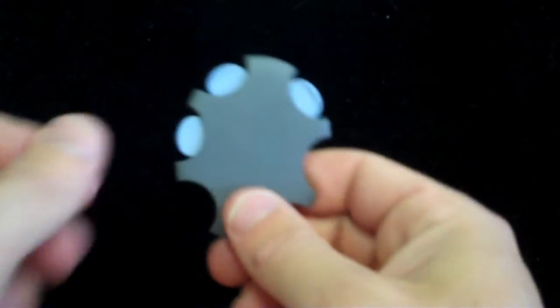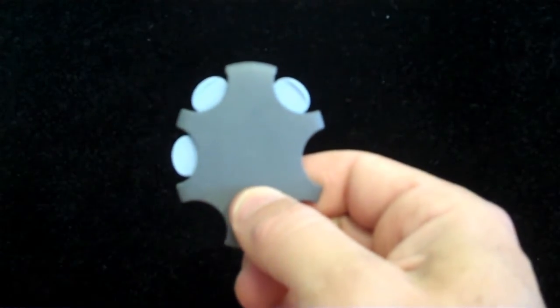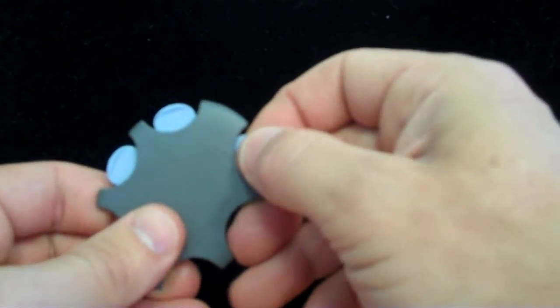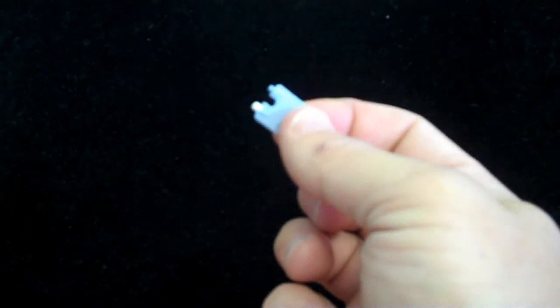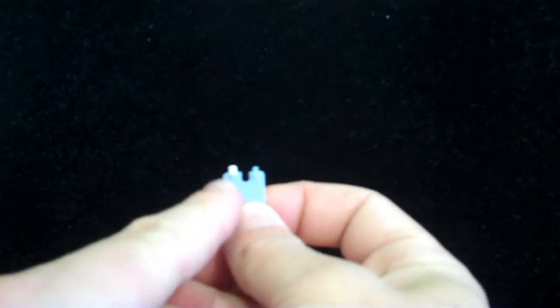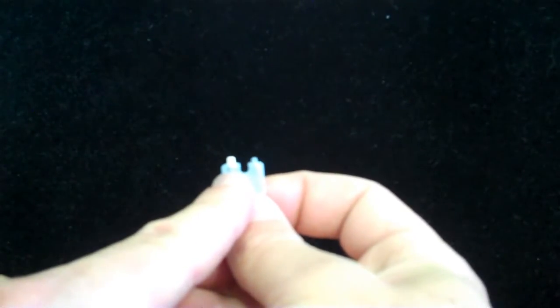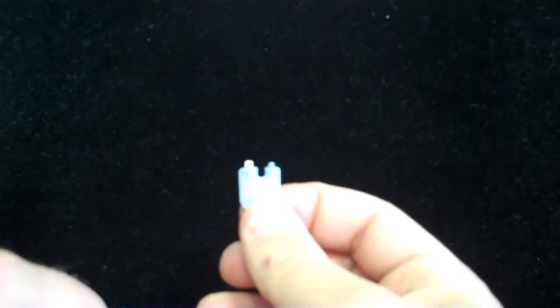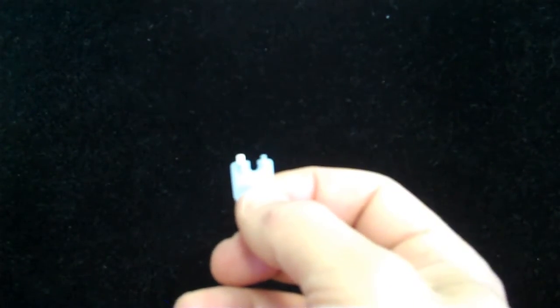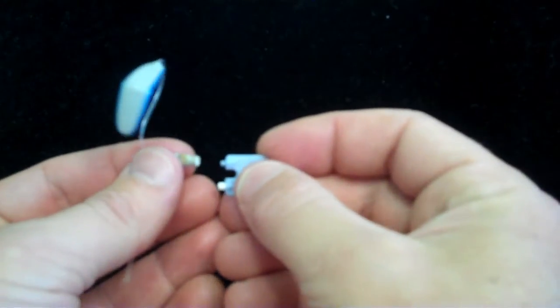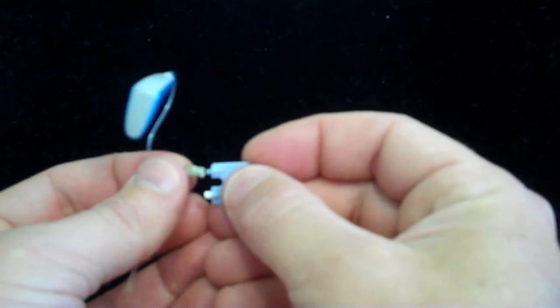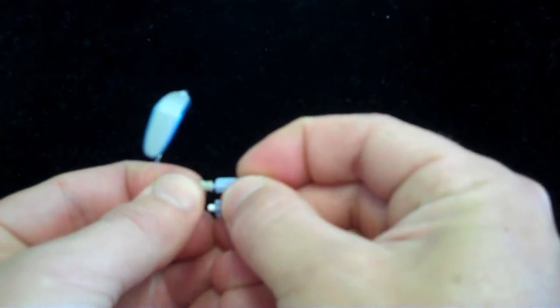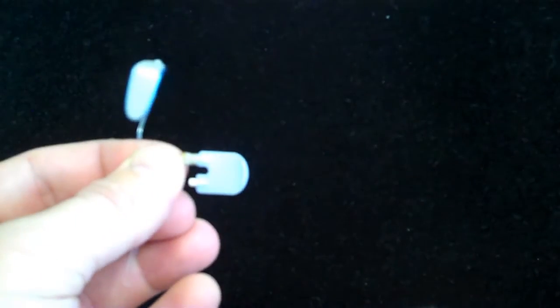The new filters in this case come in a case just like this. We remove one of the tools just like the Phonak product. One side of the tool has a new filter. The other side has a hook to remove the old filter. We'll take the side with no filter on it, just the hook, and we push that directly into the existing filter.